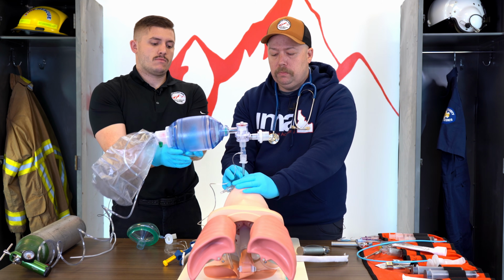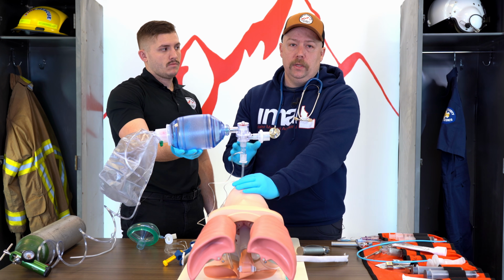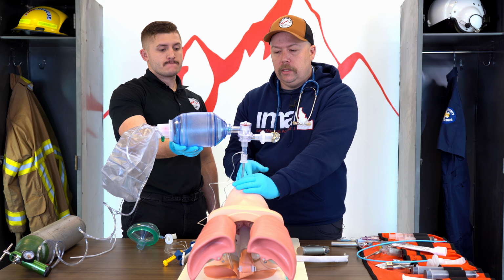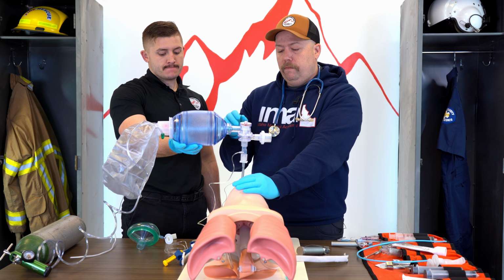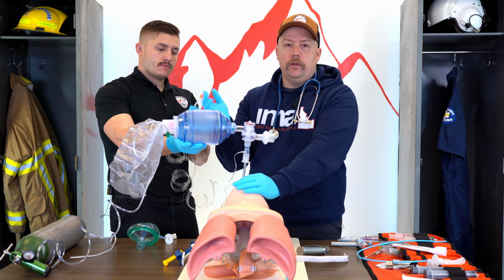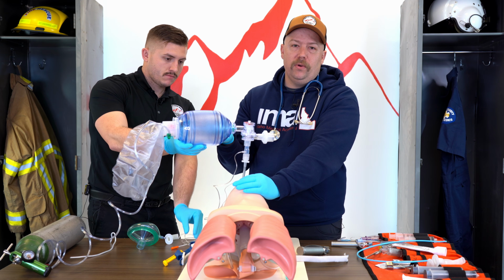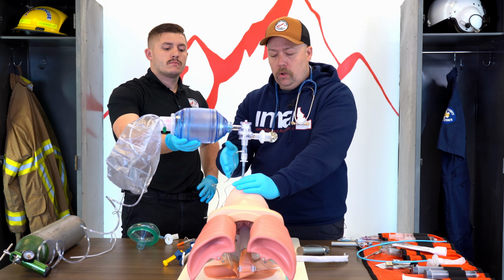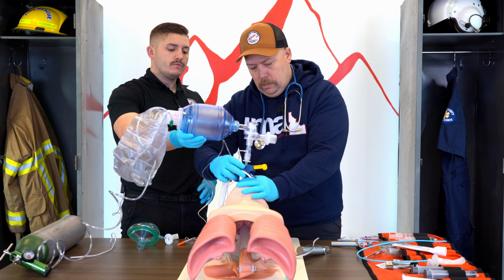All you really need to know is this is one of our best confirmation methods to confirm that we are where we want to be, that we're in the trachea and not the esophagus. So this will plug into your cardiac monitor, and if we are in the correct position, we will get a number. That number could be low, it could be high. Normal is 35 to 45, but as long as we don't have a 0, that should mean that we are in the correct place. And so this is one way we can confirm we have a successful intubation.